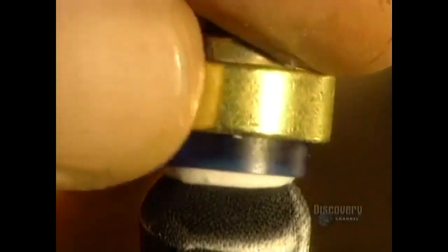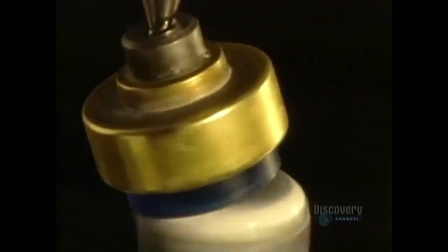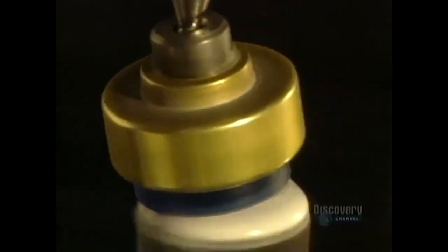It must be free from any abrasion and imperfection and is polished with a super fine abrasive paste. Polishing is a crucial step because it assures excellent comfort and perfect vision.